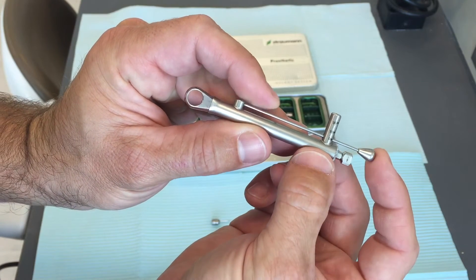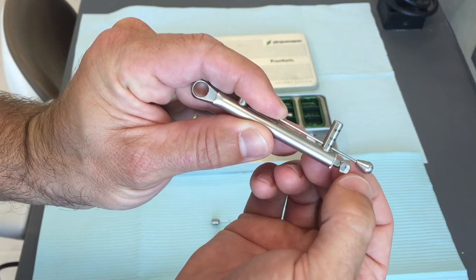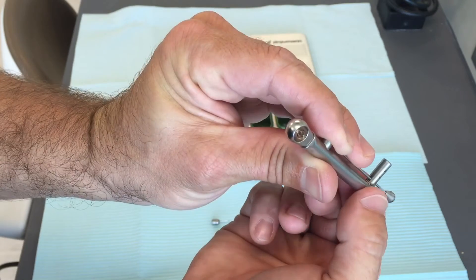At that point you've assembled your torque wrench. The knob has an arrow on it — to tighten the screw in your prosthesis, you're going to want to take this little knob and turn it so that the arrow is pointed towards your teardrop-shaped bar.